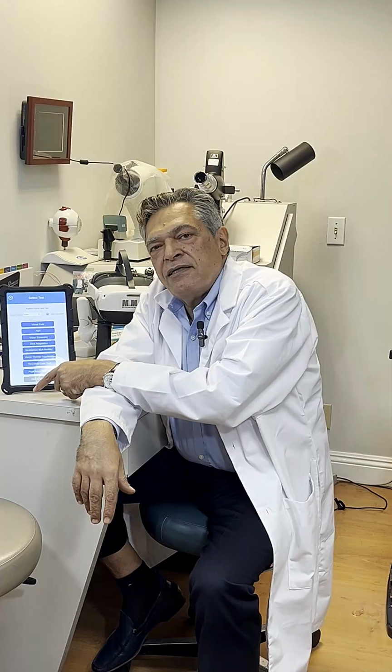One of the most important uses for the device in my office is to see which patient is a good candidate for the multifocal or premium intraocular lens implant. The pupillary measurement is a must, because you need to know the minimum pupillary diameter and maximum photopic and scotopic pupillary diameter. And also, what you can't find in other machines is whether the patient has any APD.